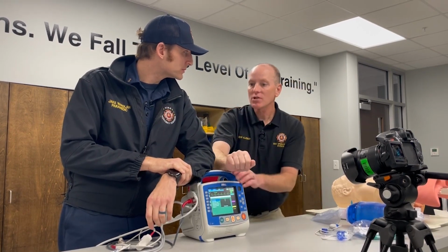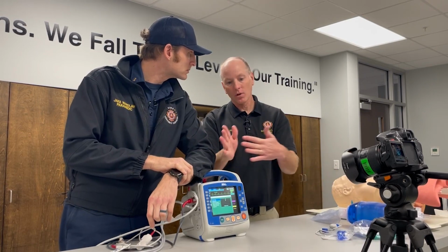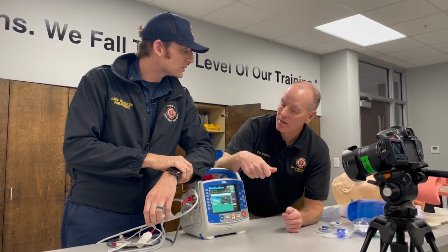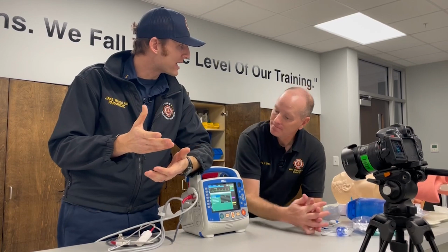Now, yes, the ages, if you get down into the weeds, the ages will actually tell you, hey, this type of block goes along with this, or your axis deviation. Don't worry about that. Hey, sex and at least the last name if you guys are going to start transmitting. So as far as putting that information, the names, how do we do that, David?